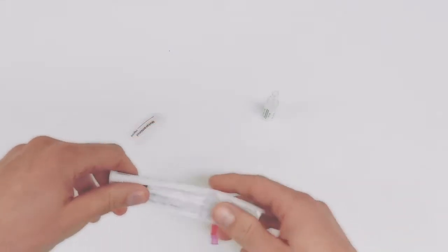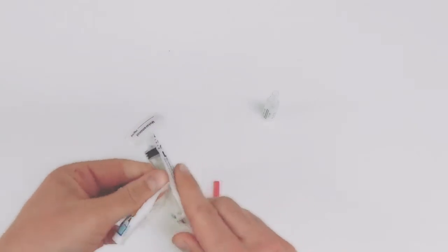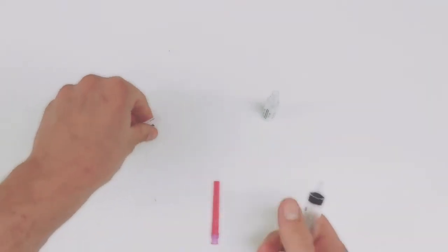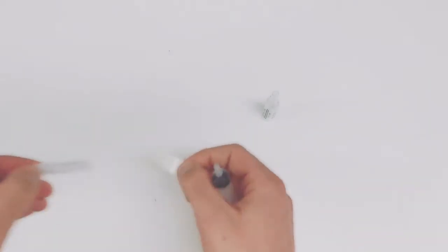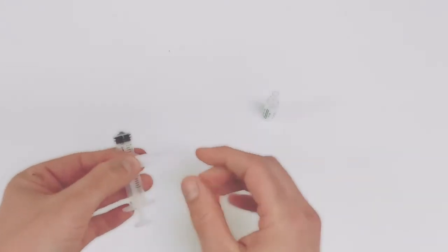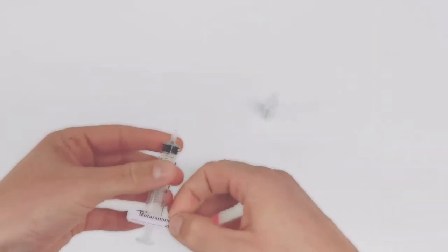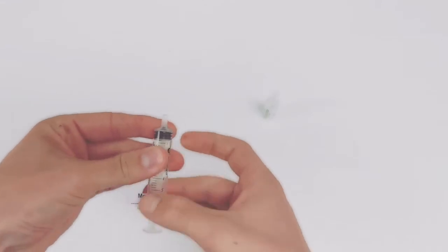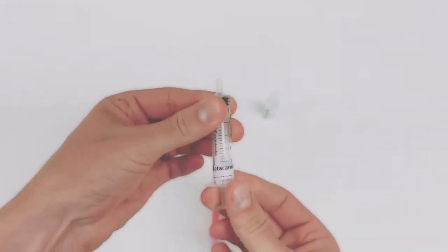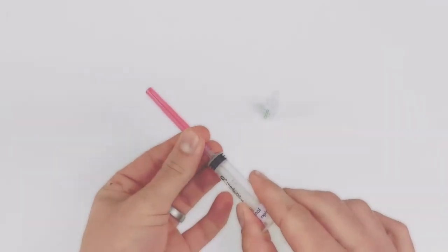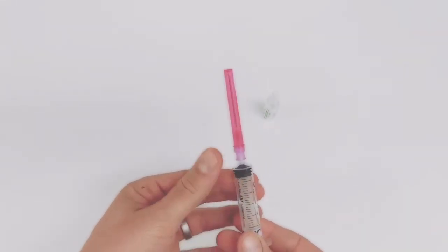So we take our syringe and pop it out through the plastic. Now I like to label it first. Everyone does it their own way, and generally we put it around the bottom of the syringe like that so you can read it. Pop your needle on. Now push and twist and it'll stick on a bit better.